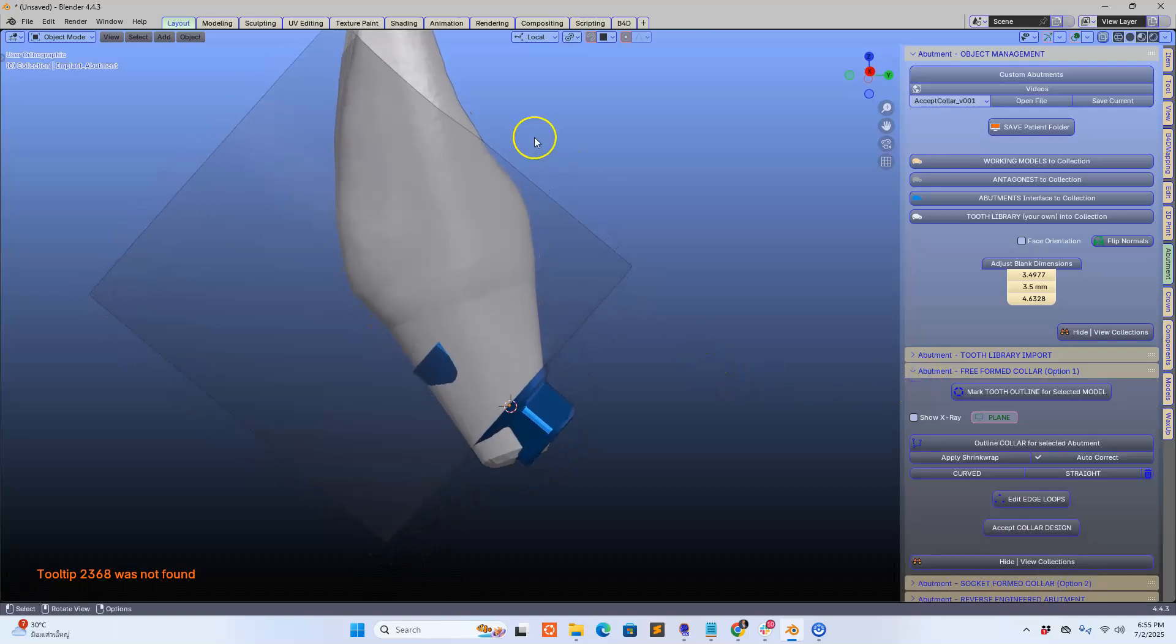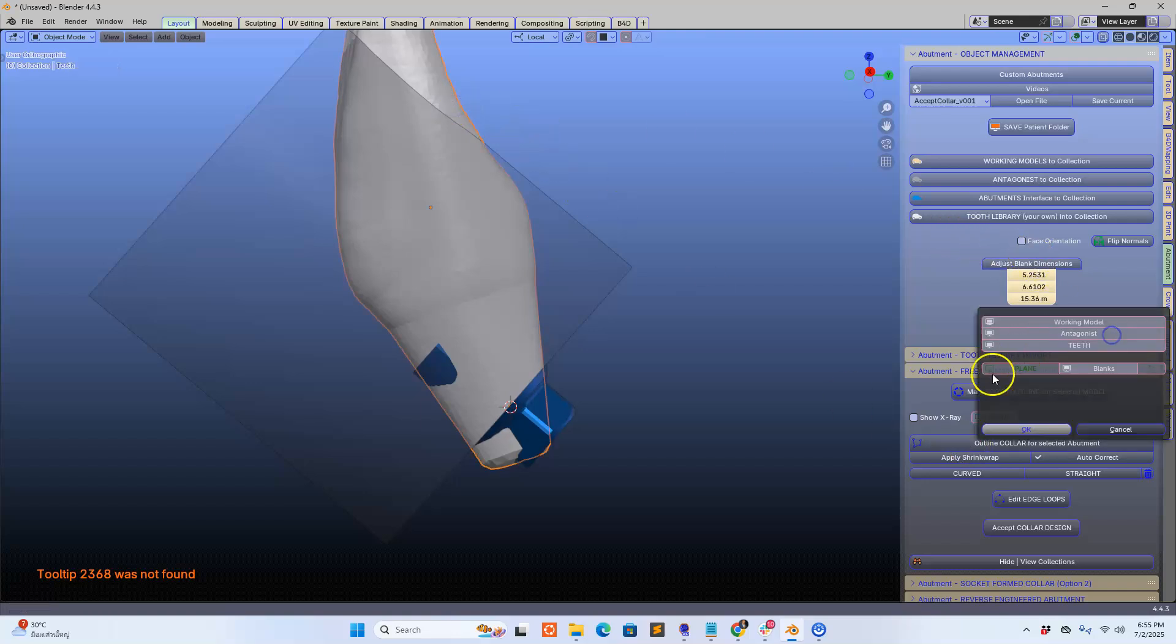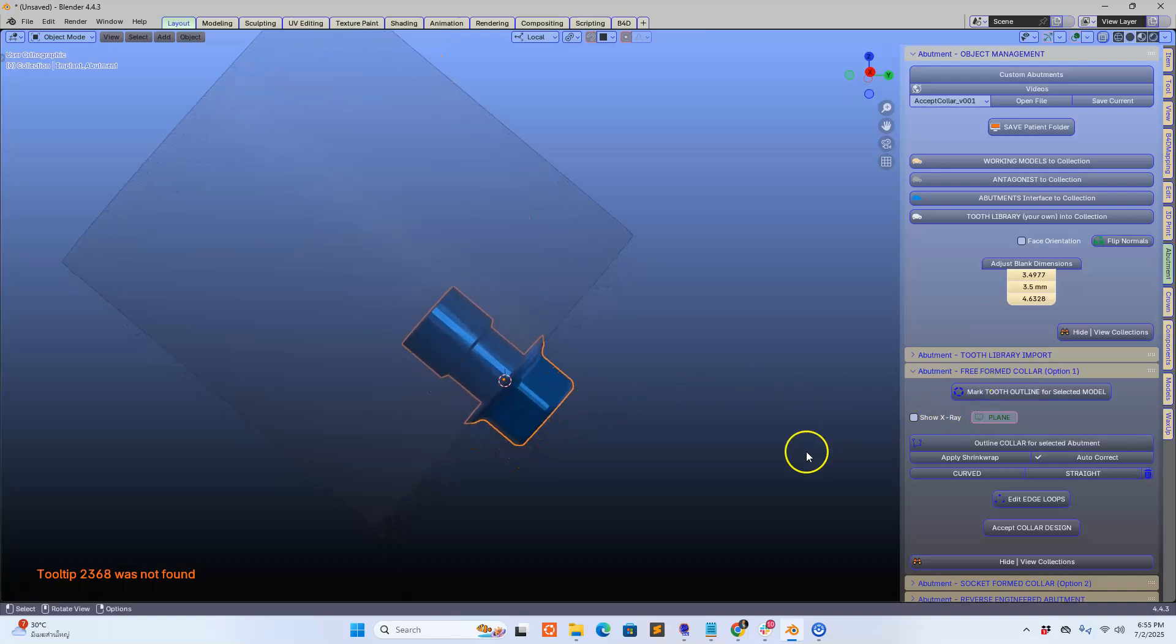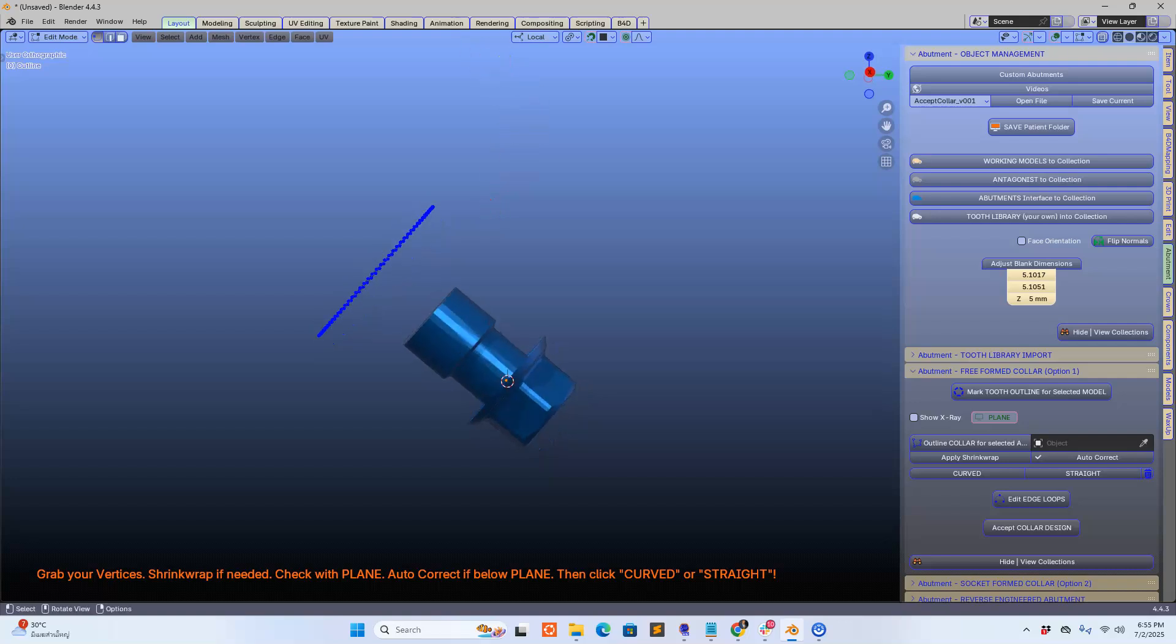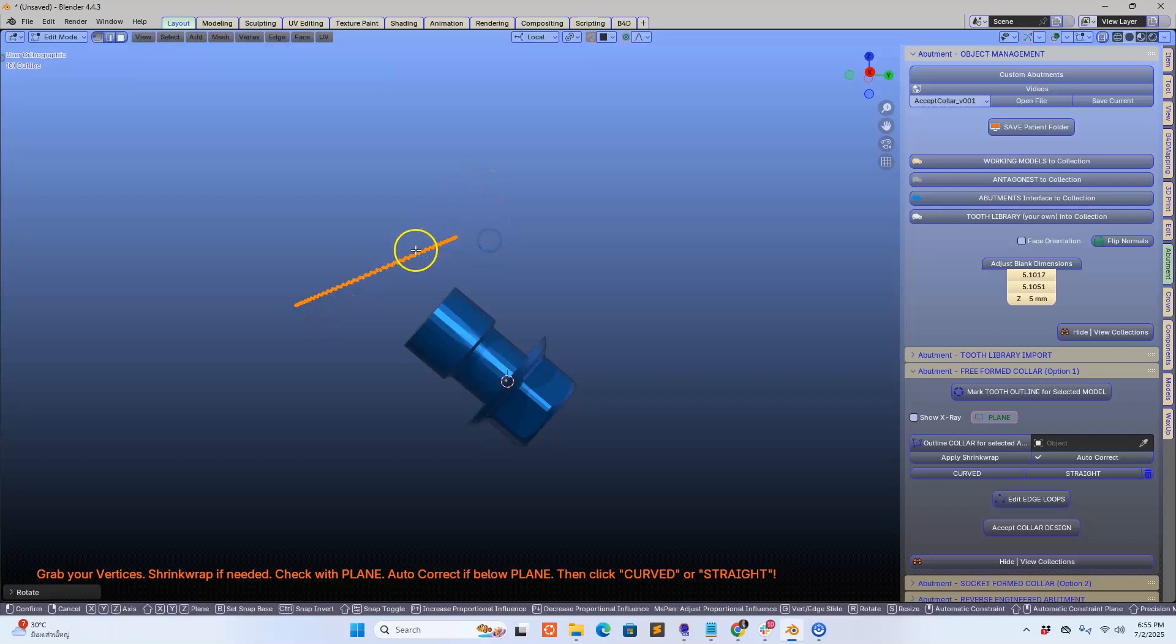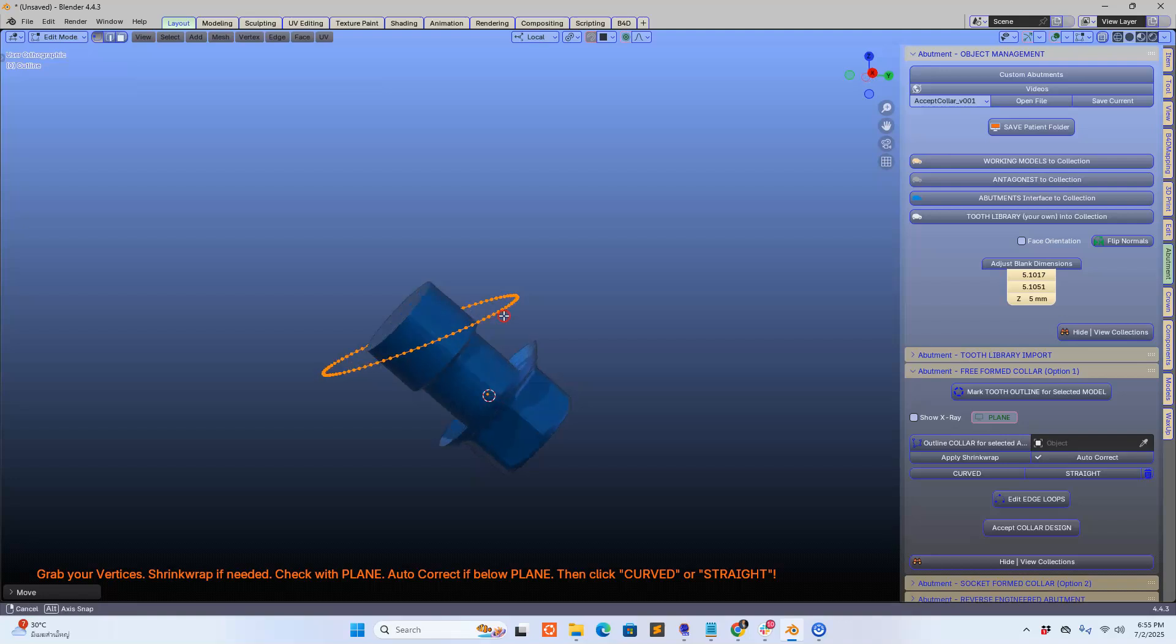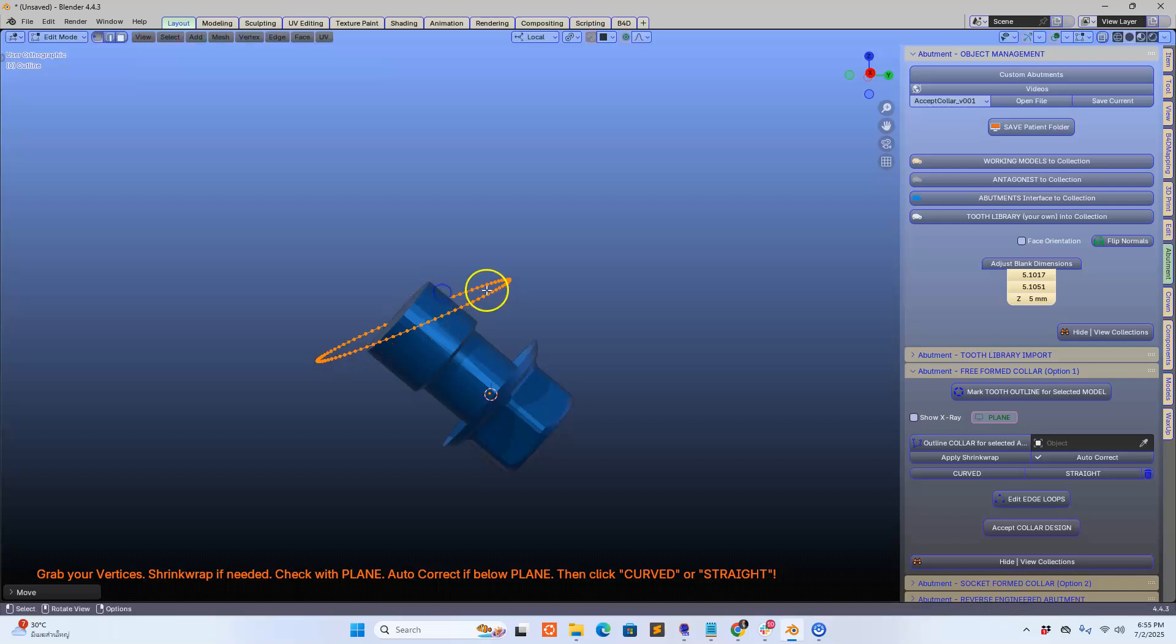So we're going to take this tooth and hide it away for now because I don't need to see that tooth. I'm going to take my abutment interface and we're going to make an outline. So unfortunately I don't have any tissue or gum or anything. I'm going to hypothetically put this into a certain position, so just say the tissue is somewhere like that. Let's make this a little bit more subgingival, something like that.